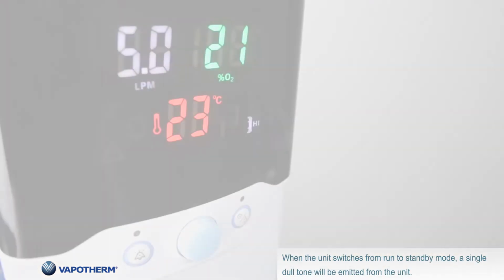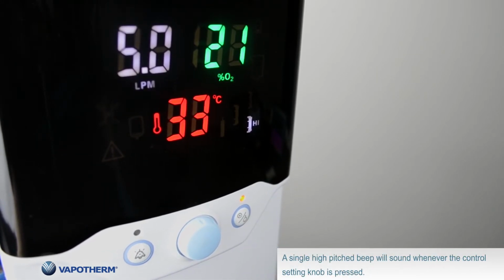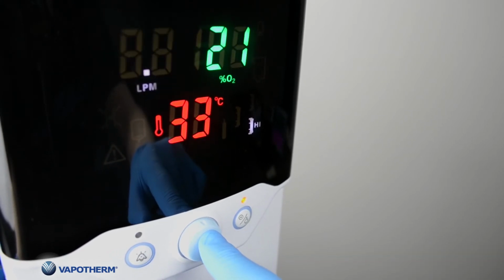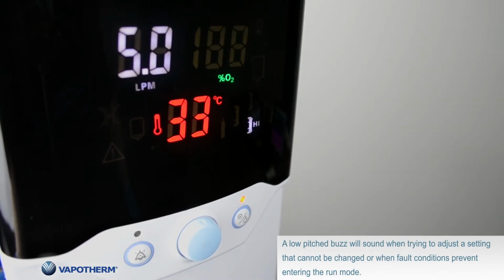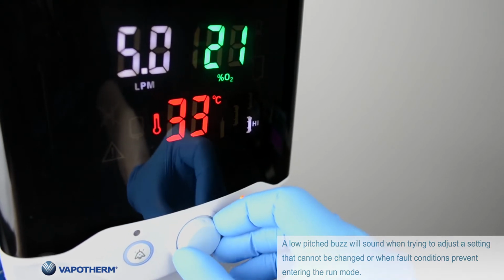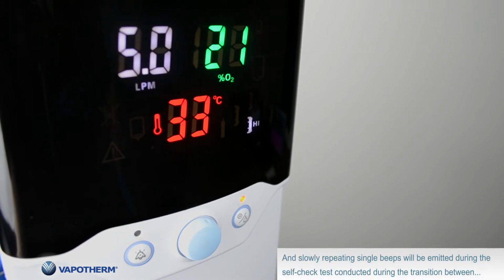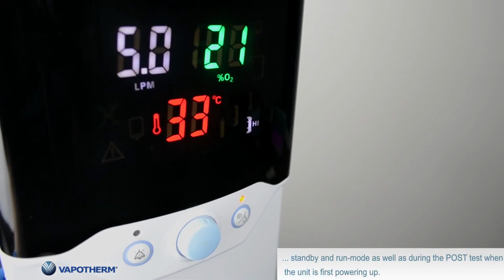When the unit switches from run to standby mode, a single dull tone will be emitted from the unit. A single high-pitched beep will sound whenever the control setting knob is pressed. A low-pitched buzz will sound when trying to adjust a setting that cannot be changed or when fault conditions prevent entering the run mode. And slowly repeating single beeps will be emitted during the self-check test conducted during transition between standby and run mode, as well as during the post-test when the unit is first powering up.